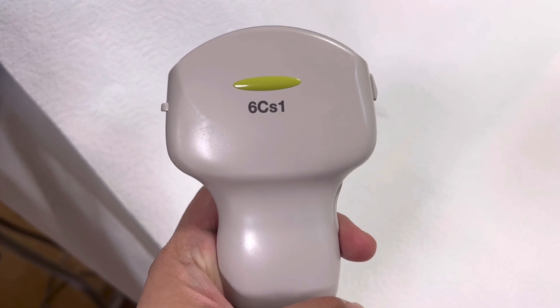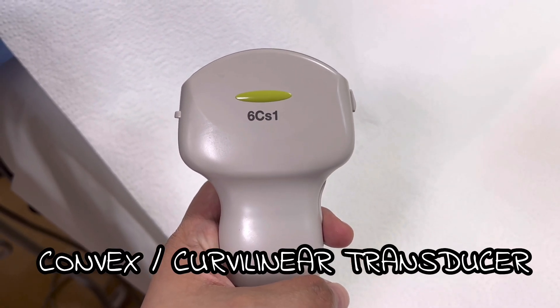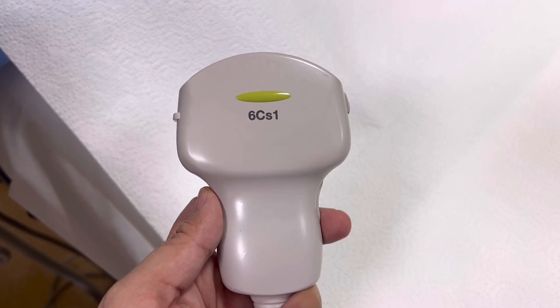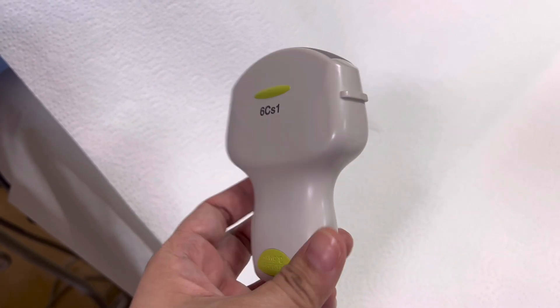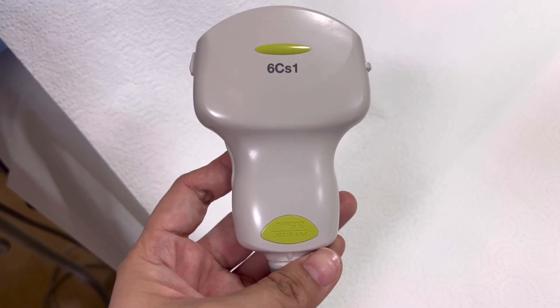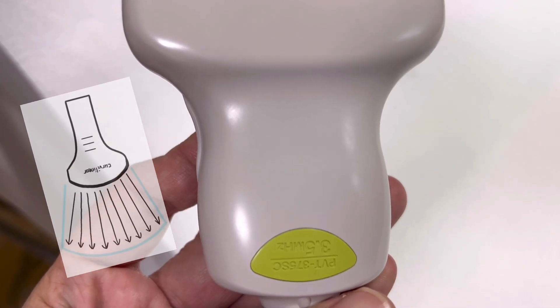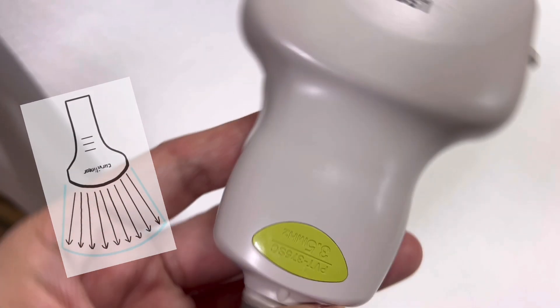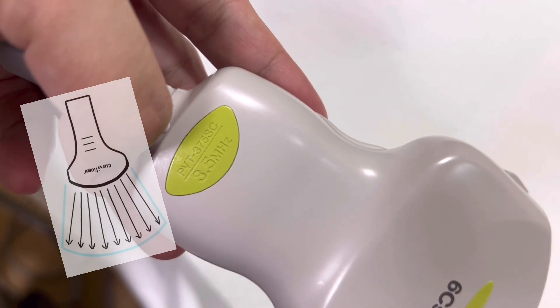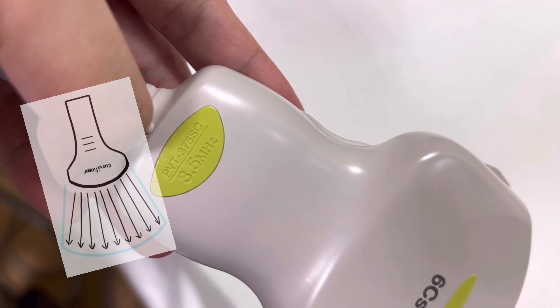The first type of transducer we'll talk about is the convex probe, also known as the curvilinear transducer. It is thought to be the most widely utilized among all transducers. This type of probe has a curved piezoelectric crystal configuration and produces a convex beam that is ideal for examining deep structures.